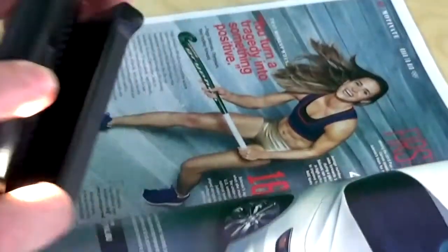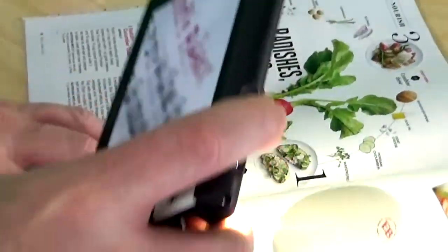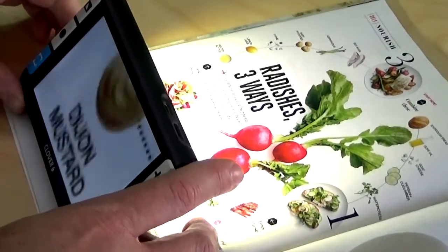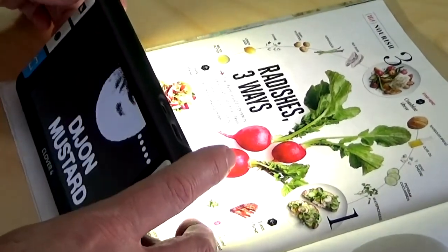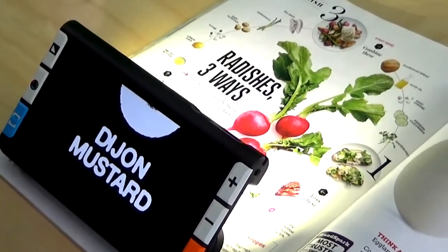When I want to do reading again, I just flip out this stand, find something to read, and there we go. I need to be in reading mode — get a nice picture of that, and off I go reading.